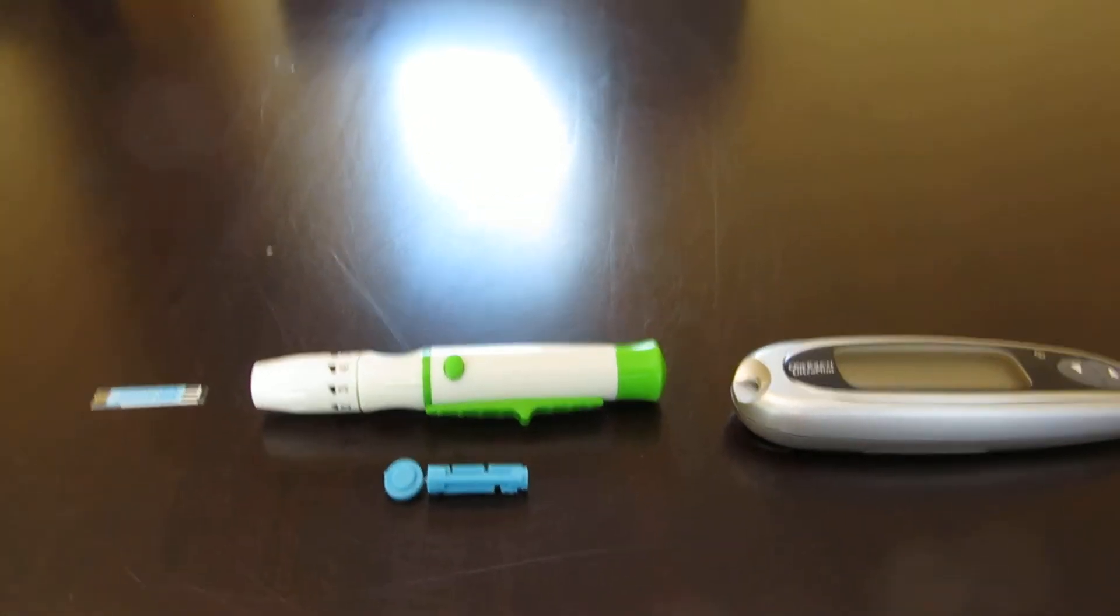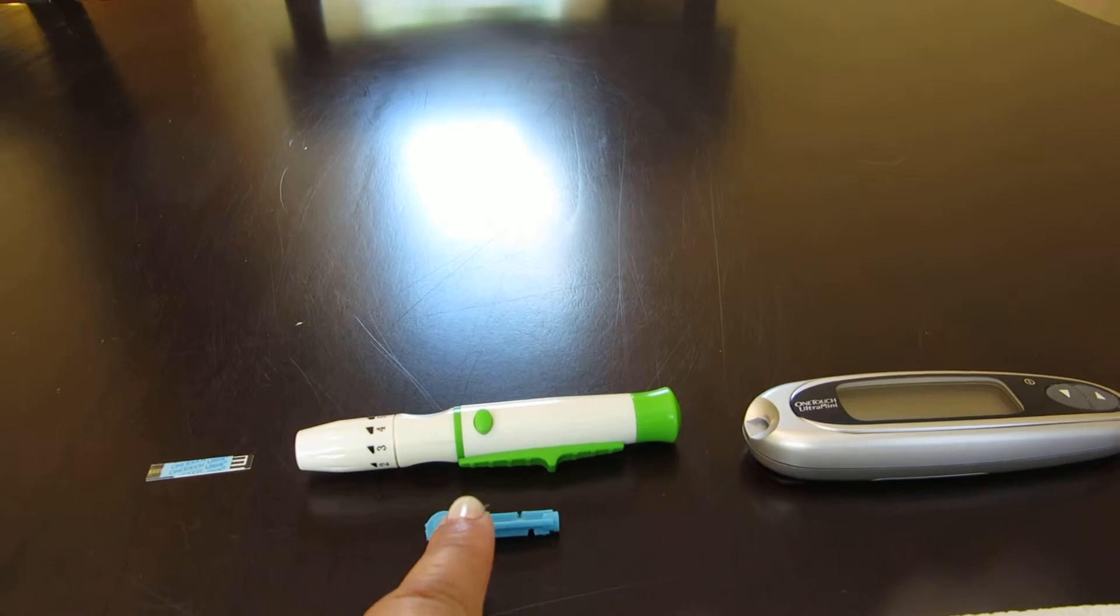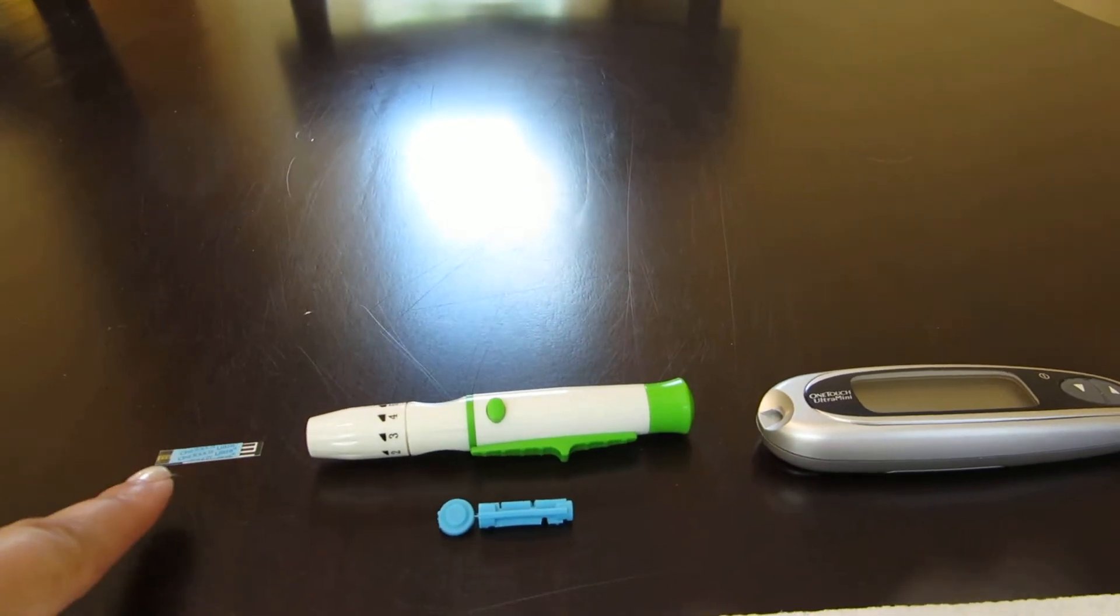First you'll need a monitor, a lancet and its needle, and a test strip.